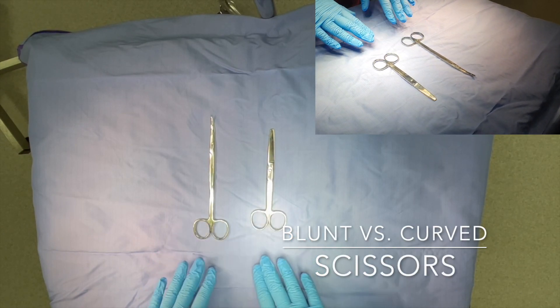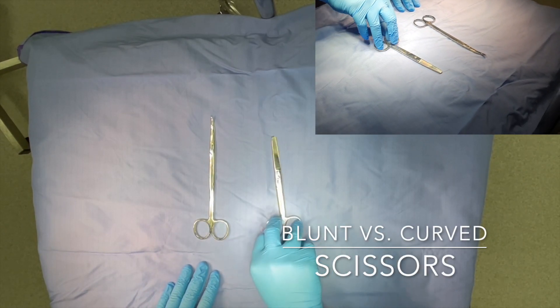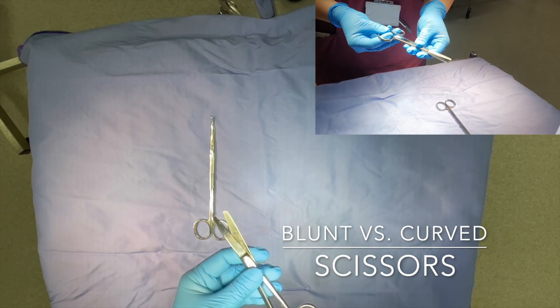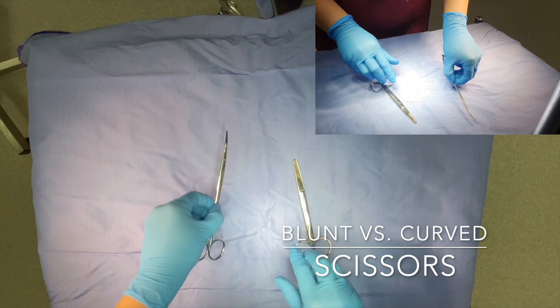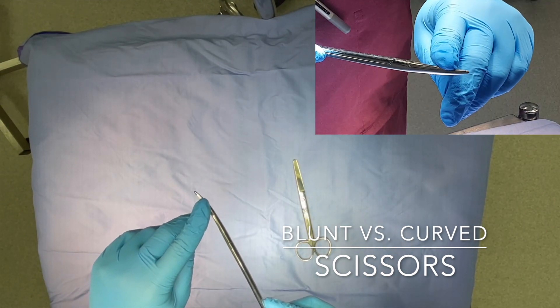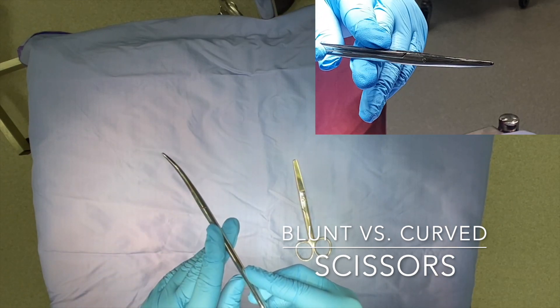These are the two main types of scissors used in theatres. This is a straight suture scissor, used for cutting sutures — it is flat on both sides. Whereas this is a Metzenbaum scissor, used for blunt dissection and dividing tissue — it has a curved, sharp edge.